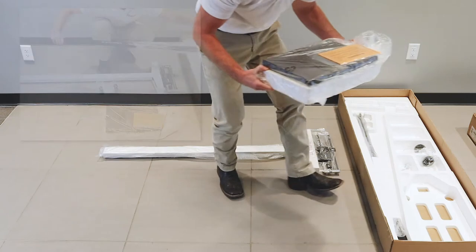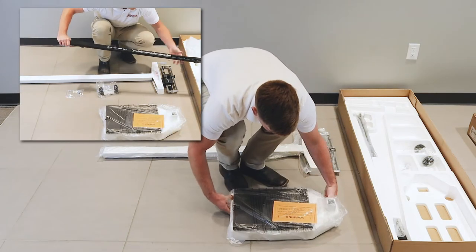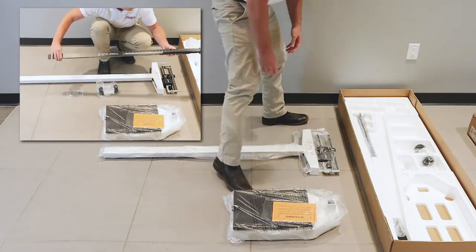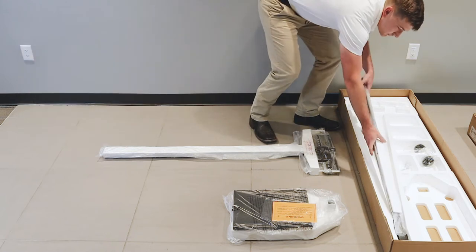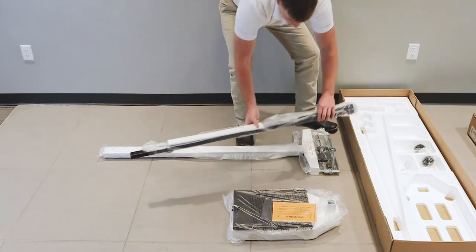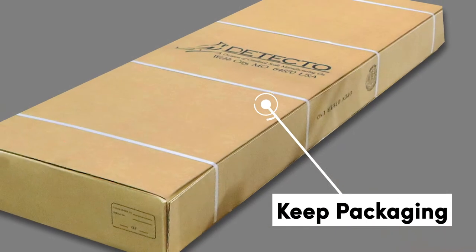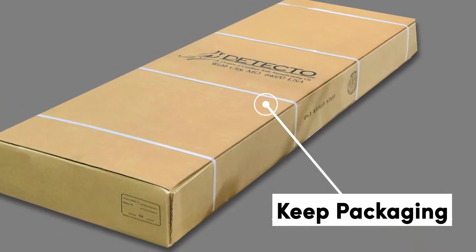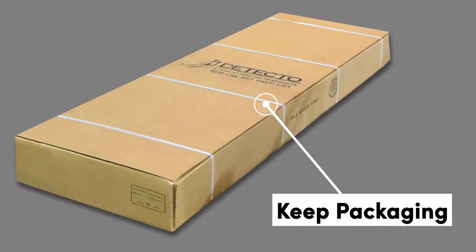Carefully remove the scale from the shipping carton and inspect it for any damage that may have occurred during shipping. Keep the carton and packing material for return shipment should it become necessary. The purchaser is responsible for filing all claims for any damages or loss incurred during shipment.